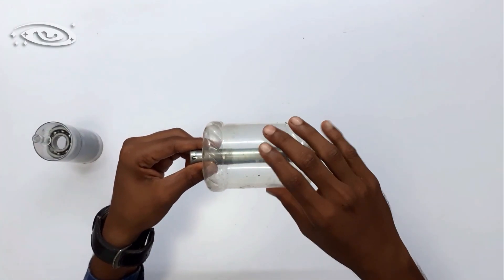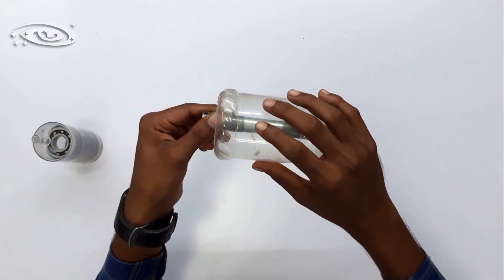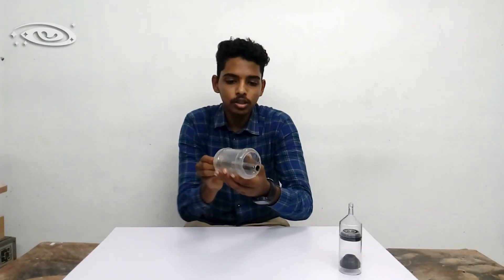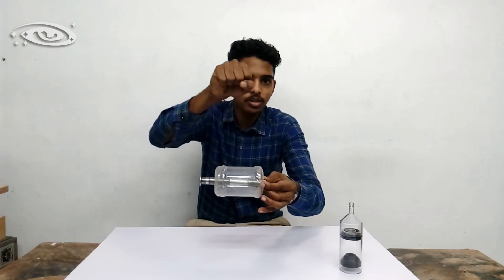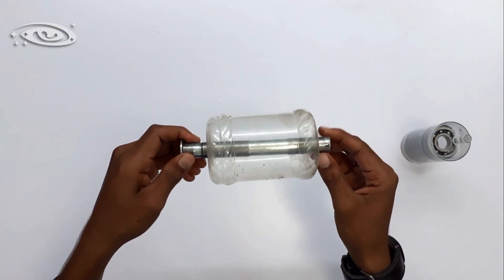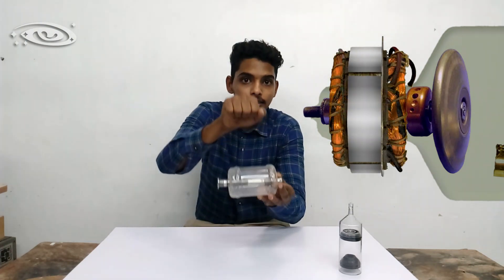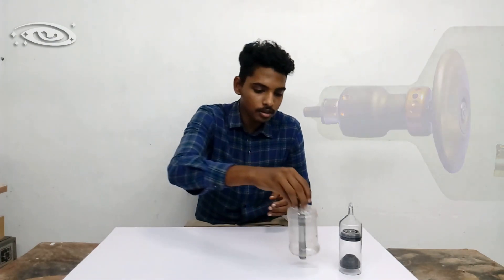This is the rotor — the transparent part is the rotor and this is the molybdenum shaft. The rotor is actually made up of copper blocks fixed in a circular array. When we give a current supply to the stator coil, it induces current inside the rotor and makes the rotor rotate. The stator is not on top of the rotor; it is on top of the glass tube. This whole component is present inside the vacuum tube.